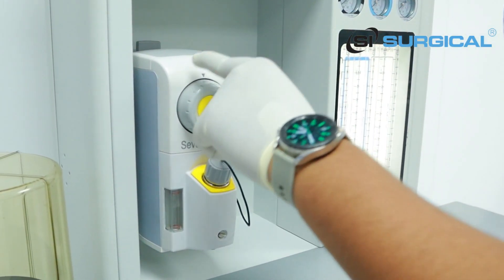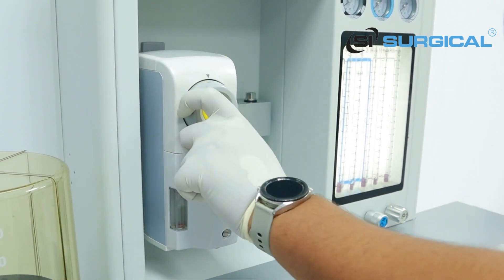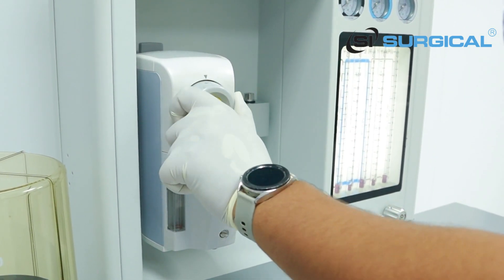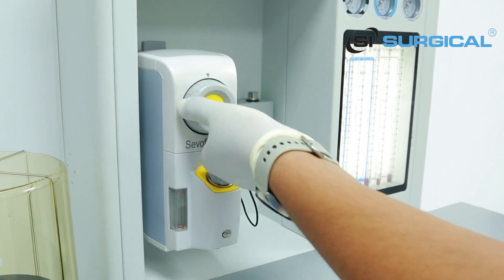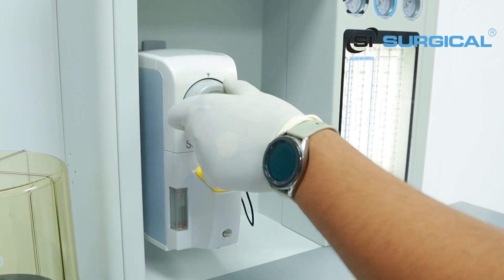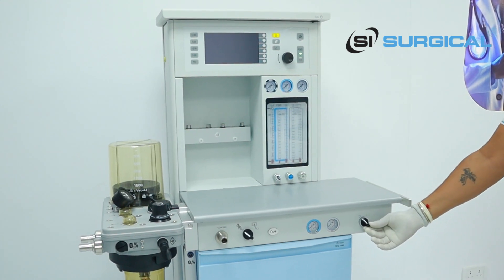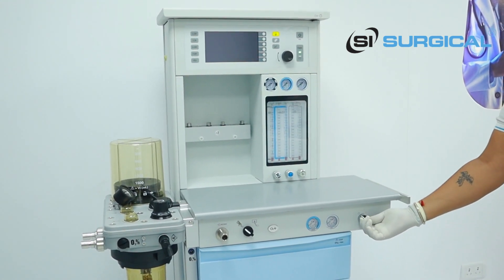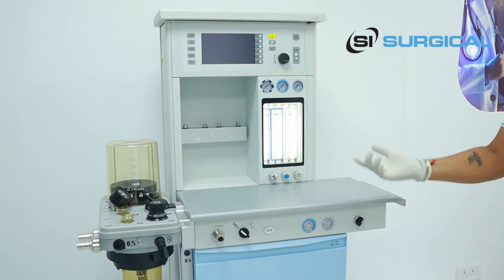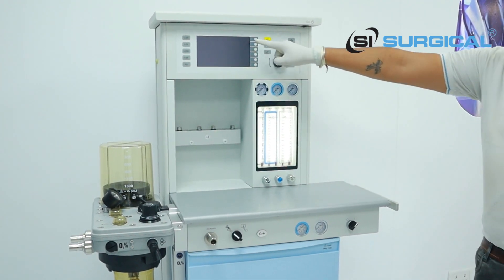This is the sevoflurane regulator panel. You can increase via here — that is how much parameter you need to provide to the patient. This is the power on/off button; you can rotate it and the power gets on.